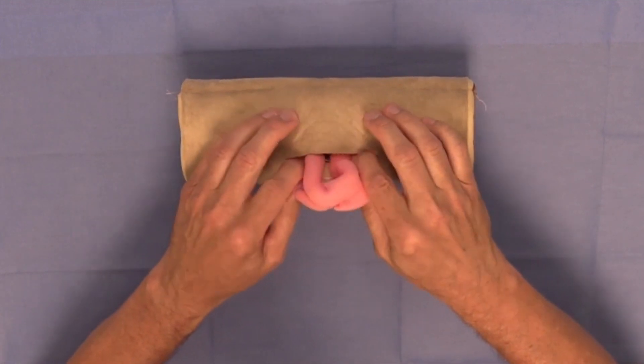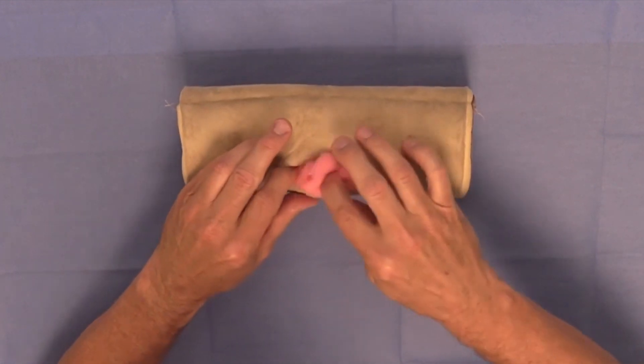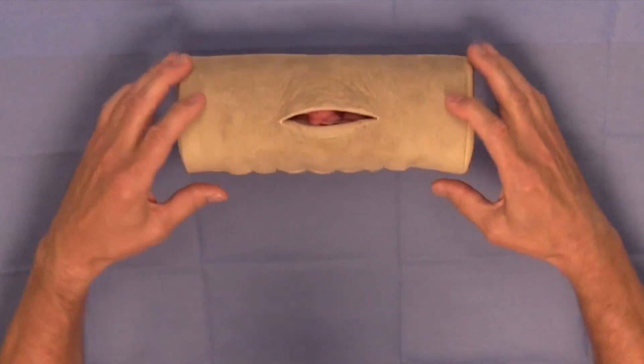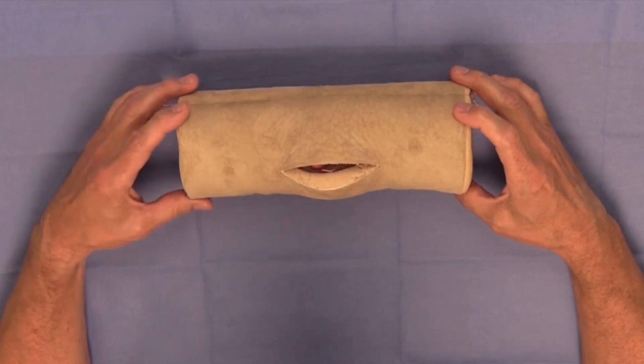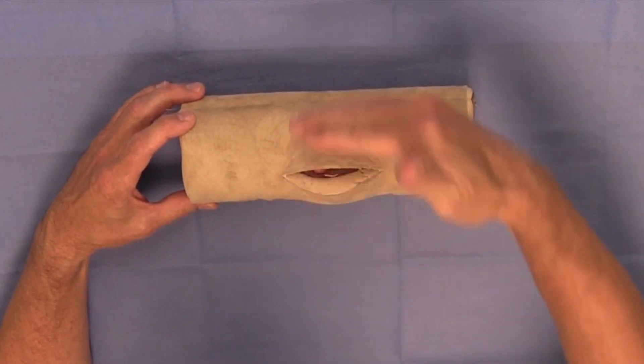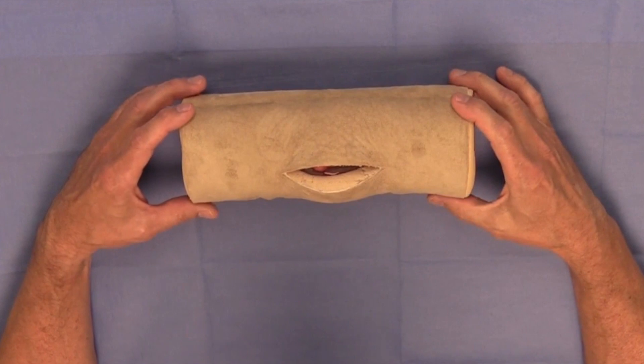So that was the design, and in general most of you will end up doing surgery in the ventral abdomen of a dog, with the dog or cat or any other species, could be a horse, oriented in this direction, standing either on the left or right side of the animal.